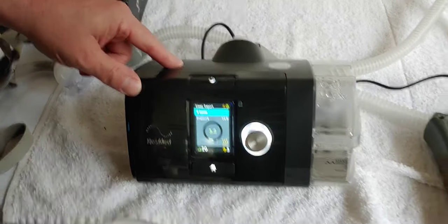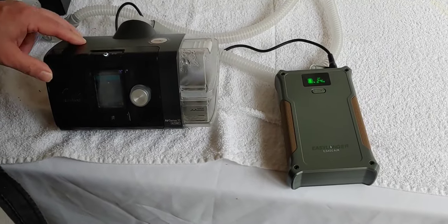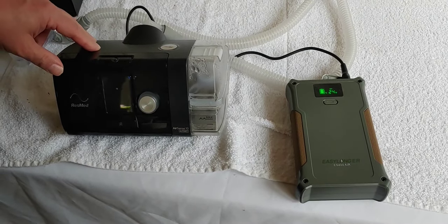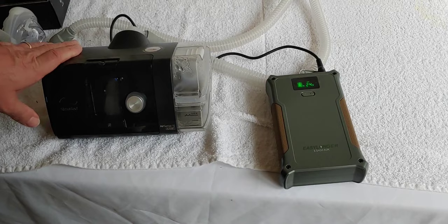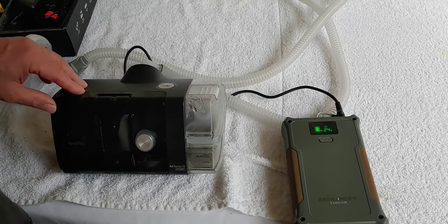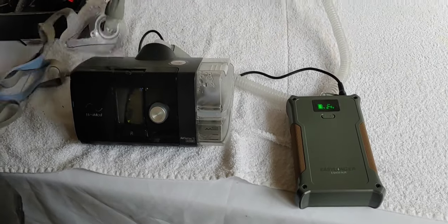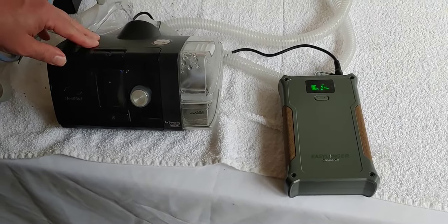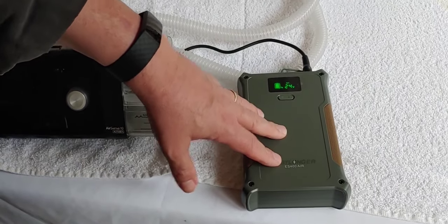This is a cheaper alternative to the last EasyLonger I showed you. This one runs around $160 to $170, much cheaper than the other one. But we must remember run times. When I tested this, it had a run time with everything on at 5.5 hours — not quite throughout the night. But if you turn the heating of the tube off and the humidifier, it will run about 24 hours. So if you're going to use this cheaper alternative, I would suggest you turn those items off.